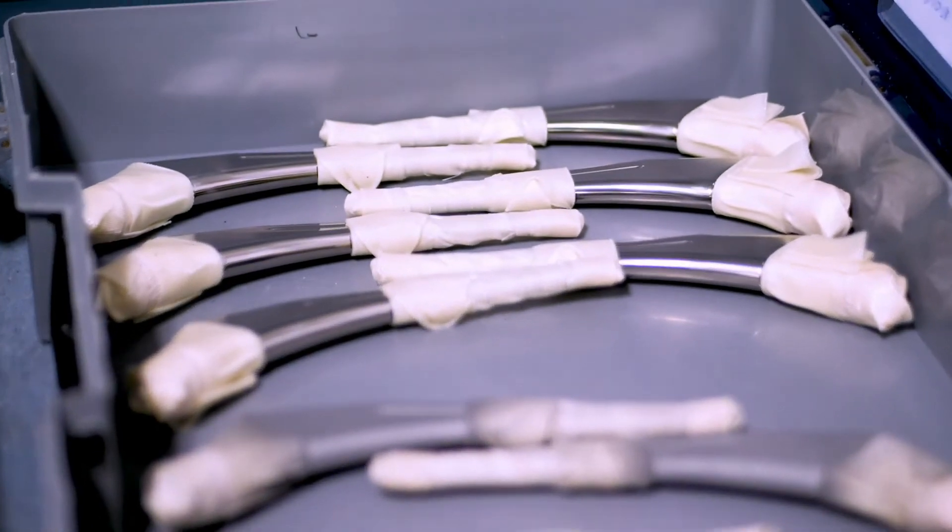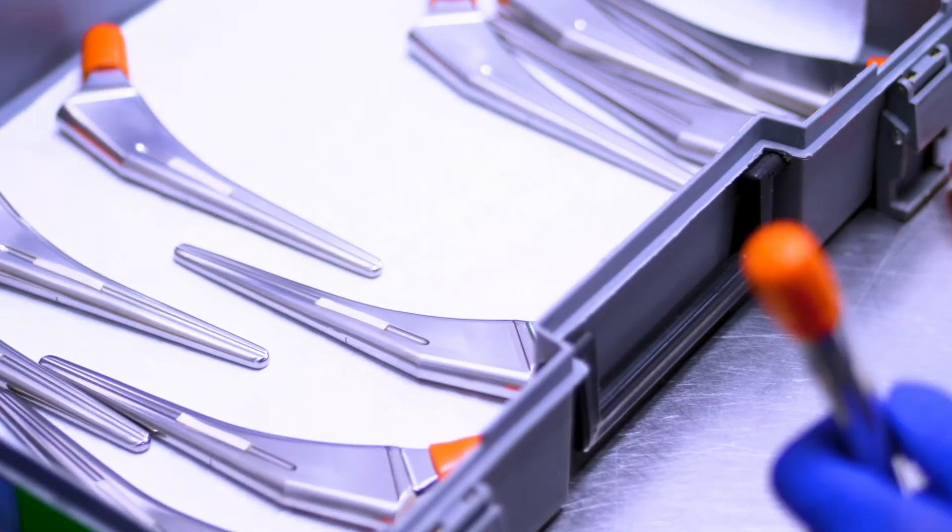On some implants, we have what's called an SLA — a plastic snap-on puzzle piece that snaps over the coating area. What we do is go around and mark where that's going to get coated. So when we take that SLA off, we now have our coating area. It is a very precise measurement system that we use here.